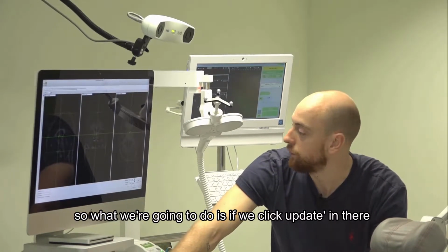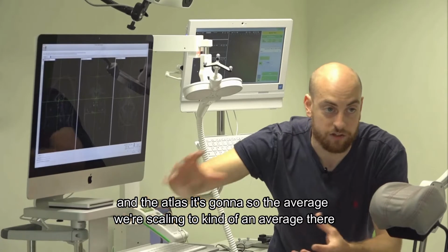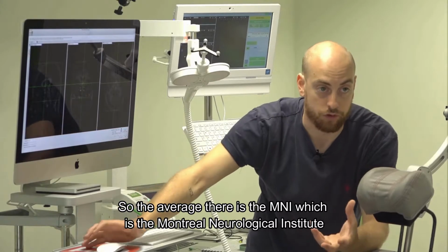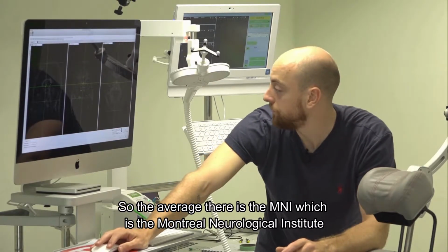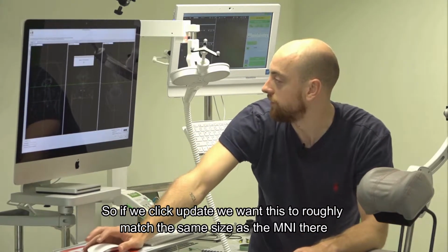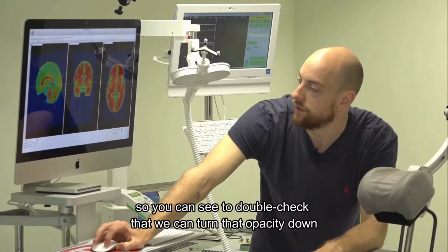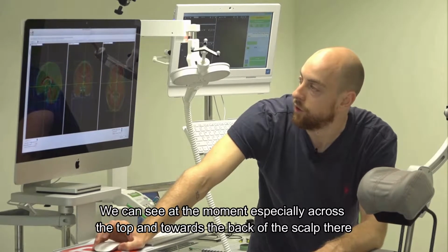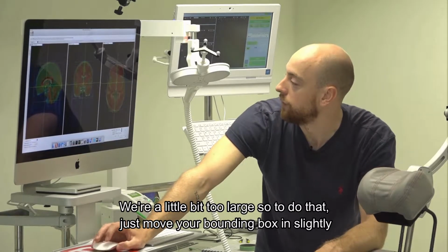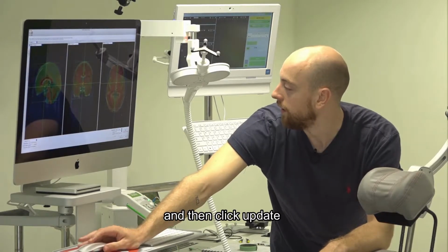If we click update in there, the atlas is going to scale to an average. The average there is the MNI, the Montreal Neurological Institute. If we click update, we want this to roughly match the same size as the MNI. To double check that, we can turn the opacity down. At the moment, especially across the top and towards the back of the scalp, we're a little bit too large. So just move your bounding box in slightly and then click update.